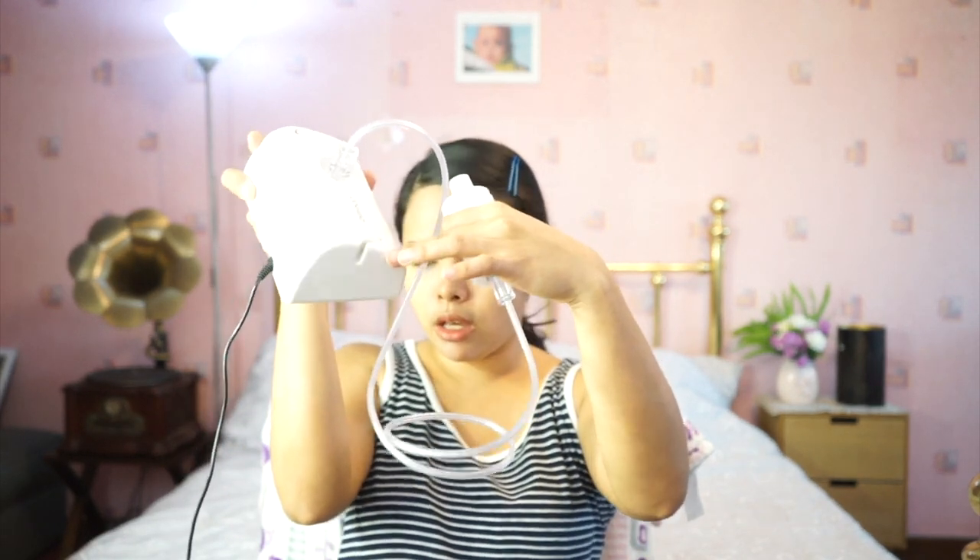By the way, that small clip part here is to hold the tubing when not in use. Also ideally, if many people in your household use it, you should rest the unit for at least 45 minutes between uses, since the compressor is smaller. Let's try it using just distilled water to test how silent it is.